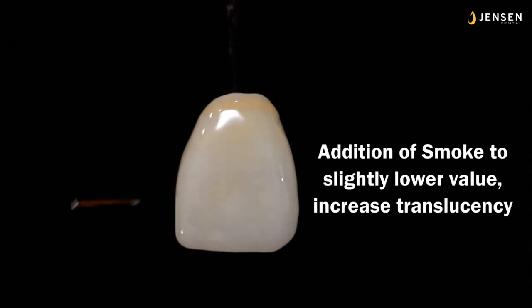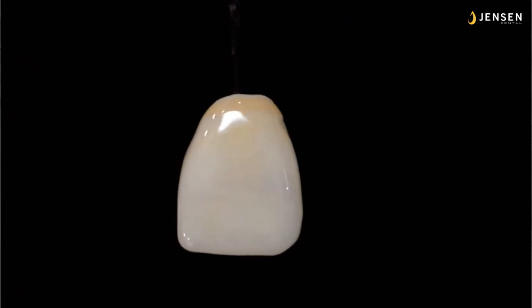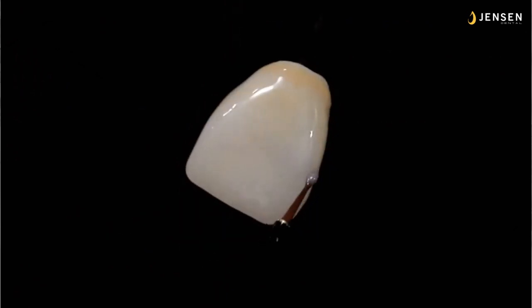The addition of smoke to slightly lower the value or increase the translucency. Smoke is a violet gray, so it's just very, very subtle. It's not overpowering. So if you're just trying to transluce it a little bit or make it look a little bit deeper, smoke is the one you want. If you want more of a translucent effect, we go to storm or we go to cobalt. But for just light lowering of value or translucency, I use the smoke. It's a lot safer, and it's very, very subtle. It's hard to tell you added the color, except it looks deeper. So you can see the value lowering there in that band in the middle third.